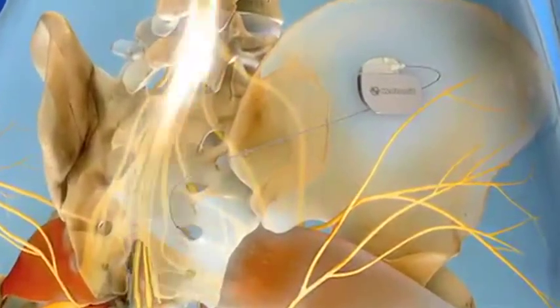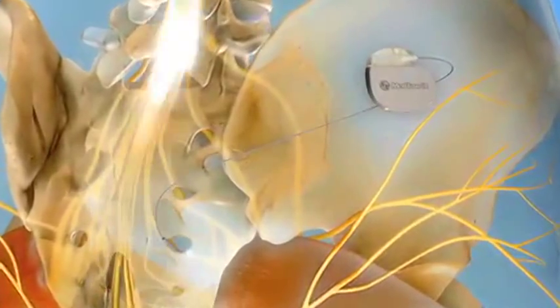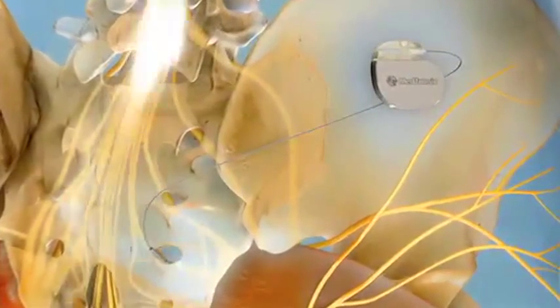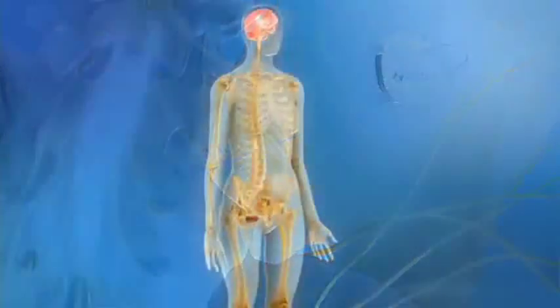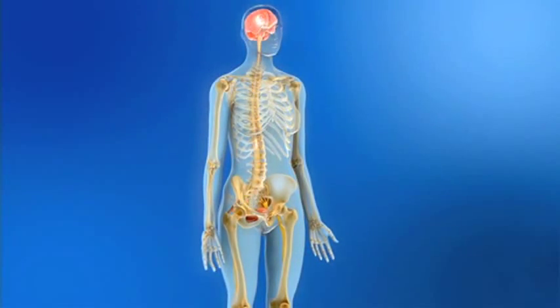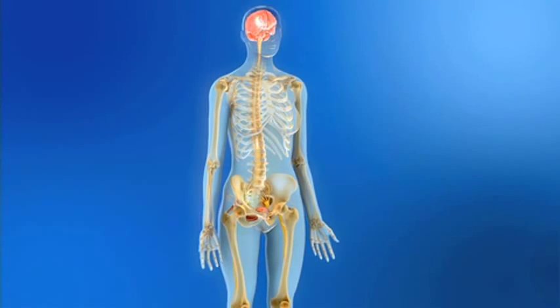Medtronic sacral neuromodulation with the InterStim system is a safe and minimally invasive treatment option for refractory OAB patients that provides continuous control through effective long-term therapy delivery.